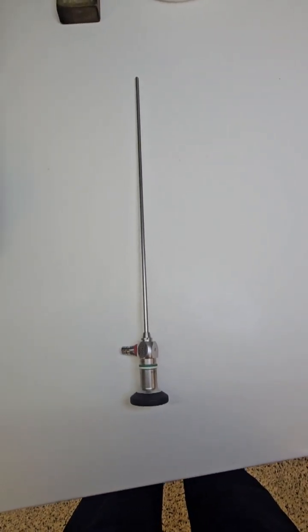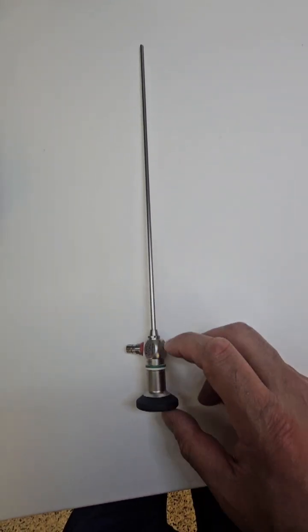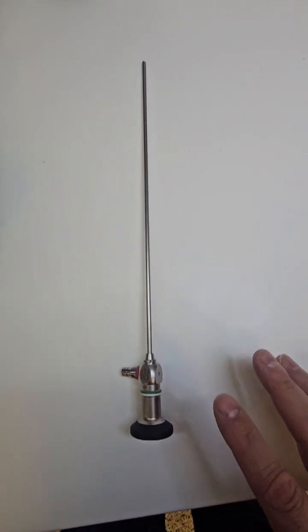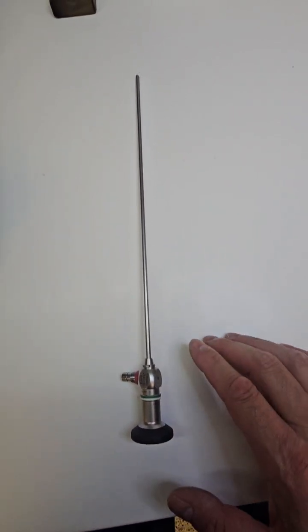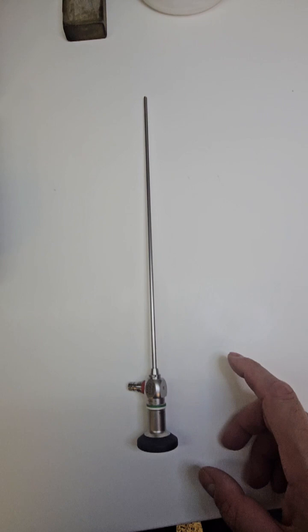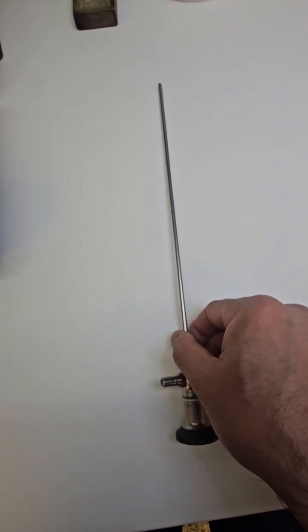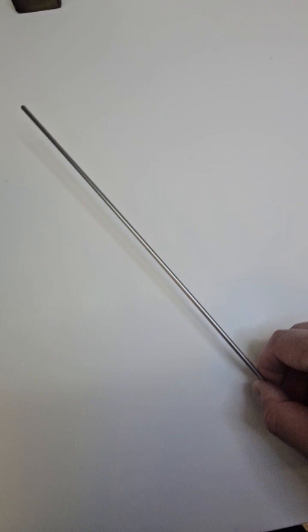What's going on guys? Welcome back to WDYDCSP - What do you do as a central sterile processor? I know I've covered this before with the proper inspection of a rigid endoscope, but we're going to do this again. I'm going to show you what a failed endoscope looks like that is actually brand spanking new. So let's get to it.